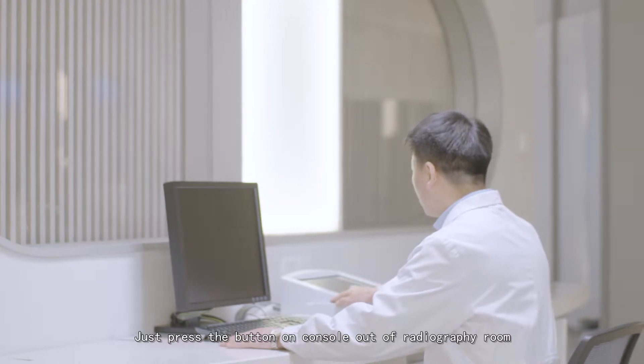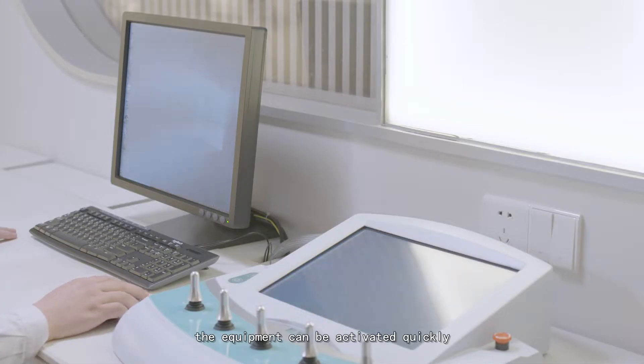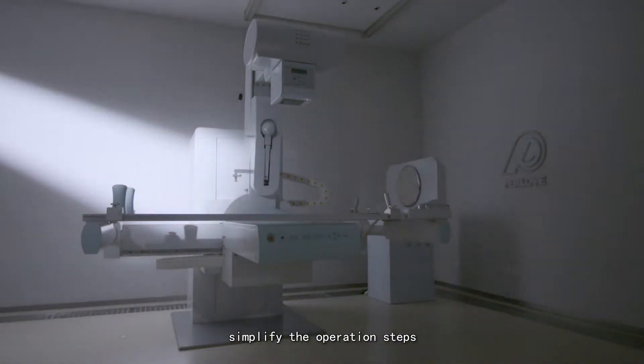Just press the button on the console outside the radiography room. The equipment can be activated quickly, simplifying the operation steps.